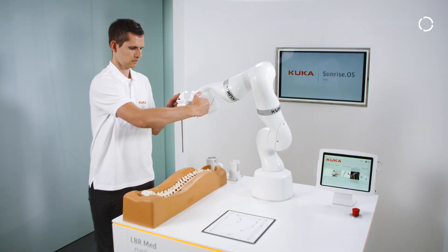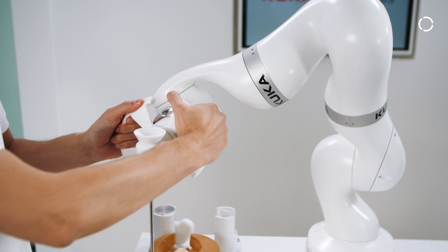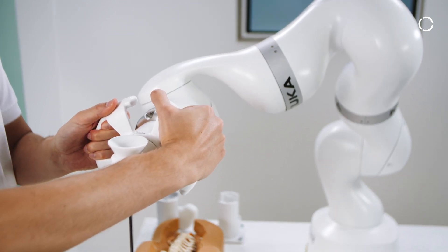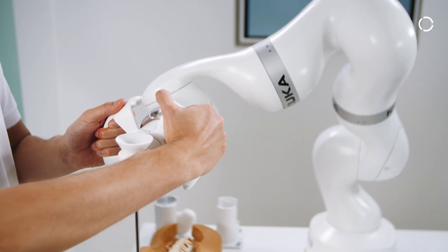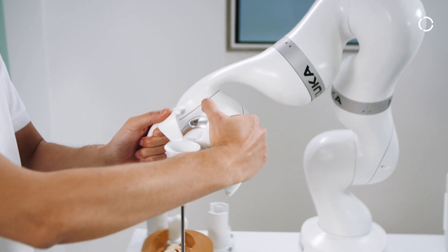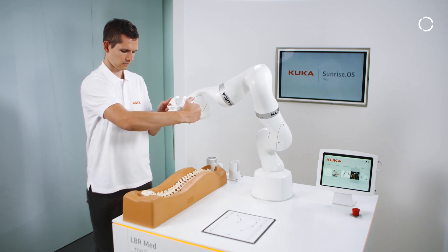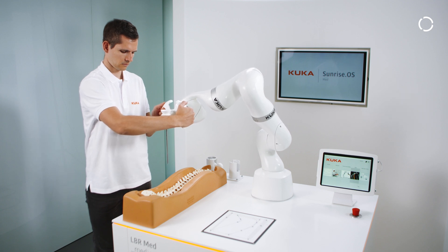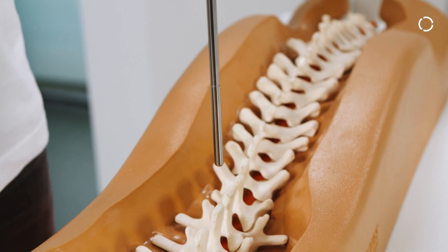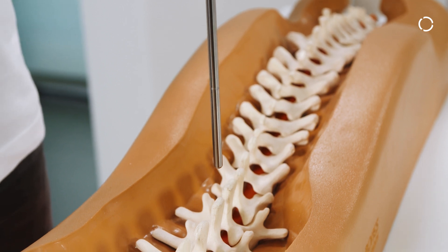An additional hand guiding option package, KUKA Sunrise Precise Hand Guiding Med, is available with Sunrise OS Med 2.6. KUKA Sunrise Precise Hand Guiding can be used to move the robot manually while the motion of the tool is restricted based on one of the defined geometric constraints, such as movement along an axis or pinpoint rotation.